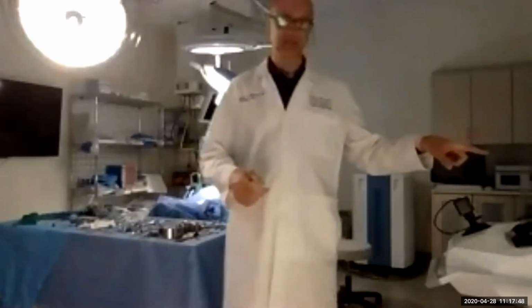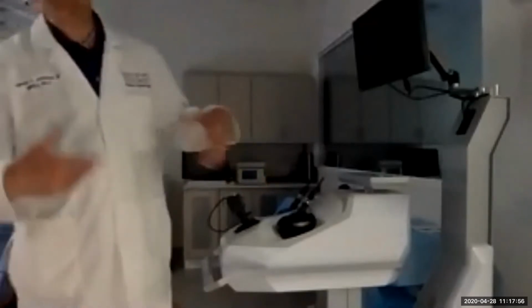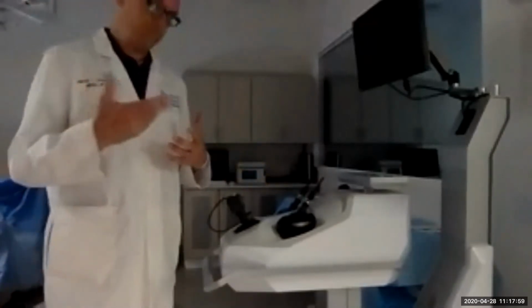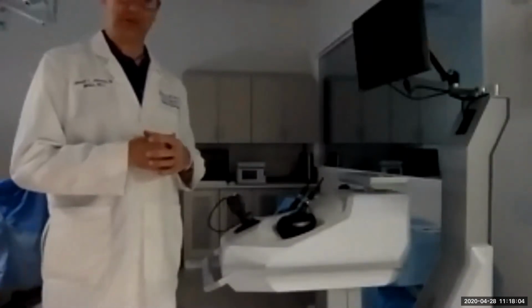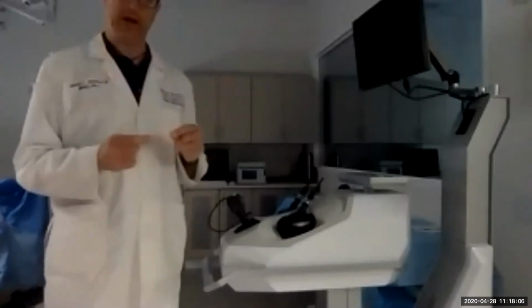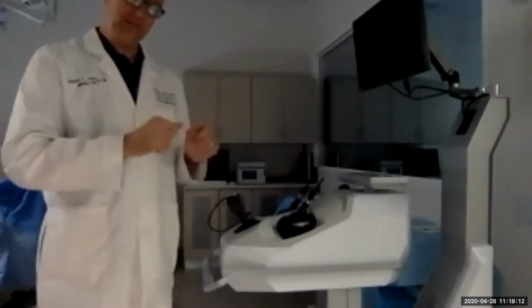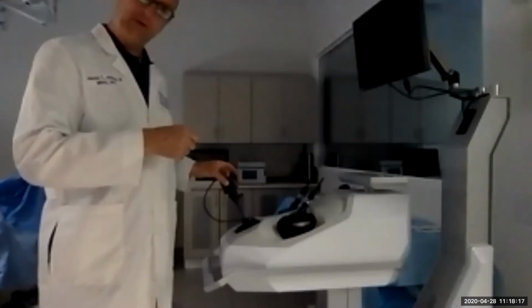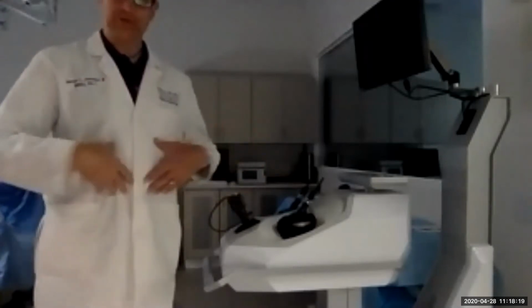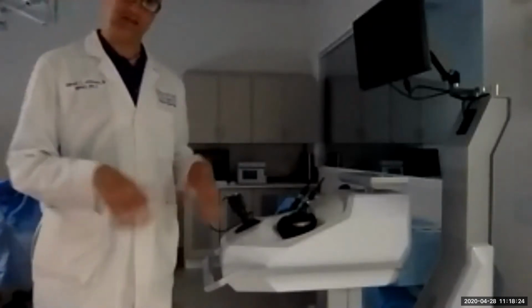This machine to the left, see if I can get it in the screen for Billy. Yeah, this machine right here is a laparoscopic simulator. And if you know much about surgery these days, you know that surgeons are doing a lot of what's called minimally invasive surgery. So they're putting little holes, like when you take a gallbladder out, for instance, and they're going in with very small tools, minimal incision, and taking a gallbladder out through those little holes, and all of that's visualized through a camera. And that's a laparoscopic surgery, okay? Very similar to arthroscopic surgery, which is in a joint, but laparoscopic is in the belly.